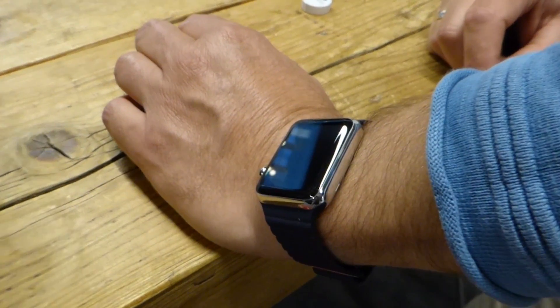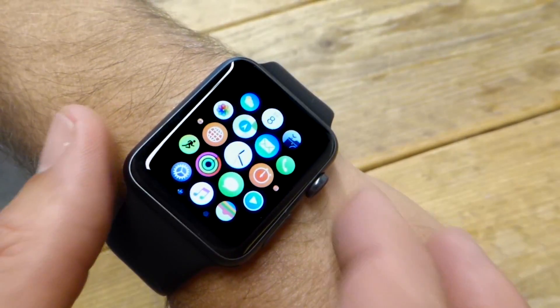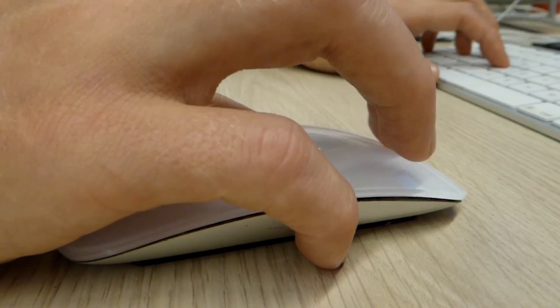We wanted to develop a wearable, and accelerometers are in all those wearables, in smartphones and now even smartwatches. The problem is, how do you get from acceleration — that's what an accelerometer measures — to depth and tempo? So we needed to develop an algorithm, which took quite some time, it's not easy, but finally we get an accurate way of measuring depth and tempo.